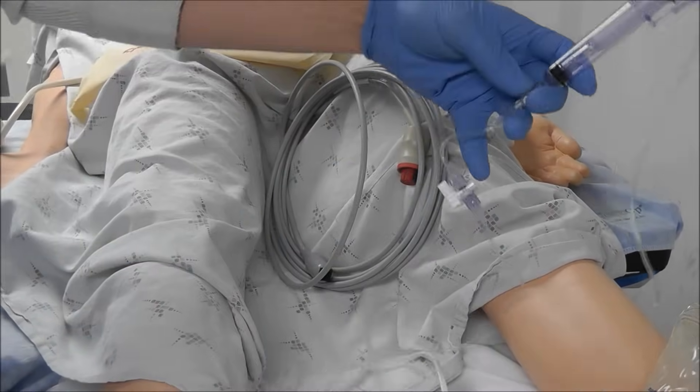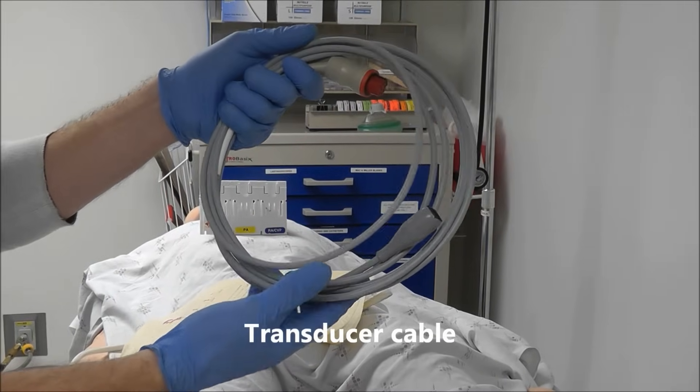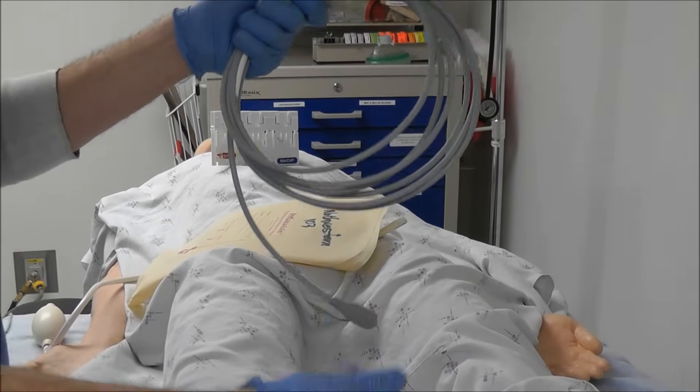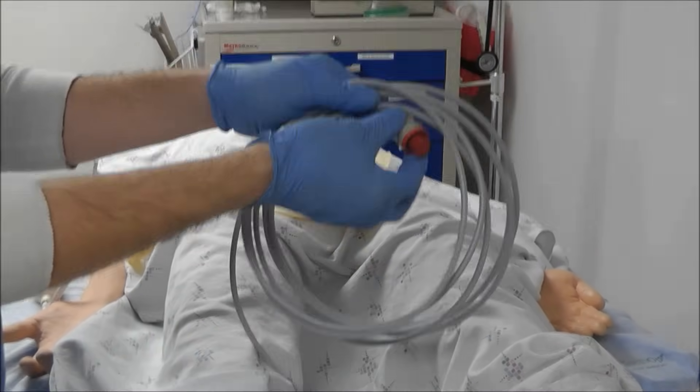Number three is you're going to actually need a transducer cable because we're going to want to be able to hook this transducer tubing here up to our monitor there.